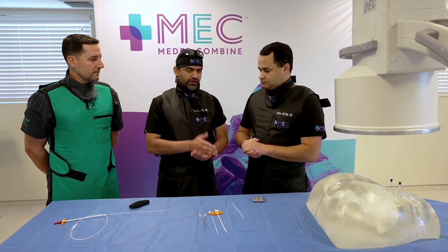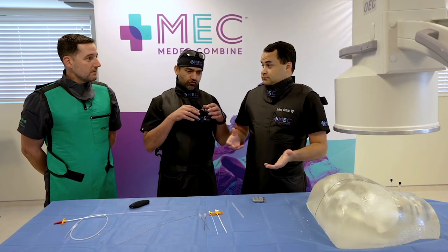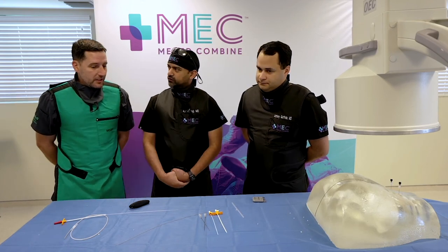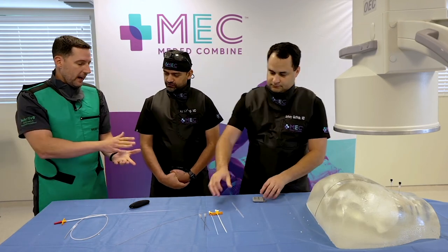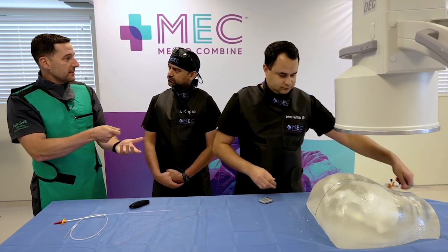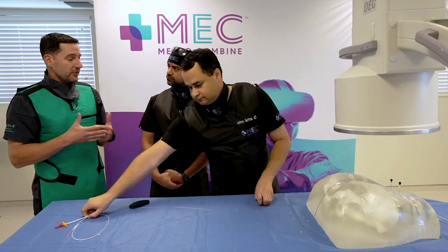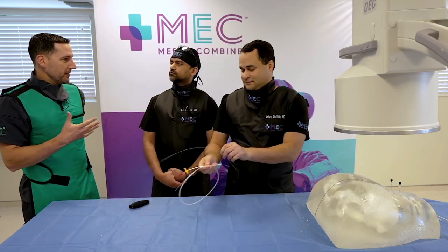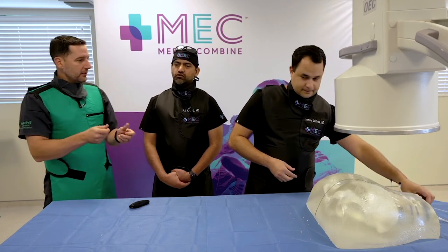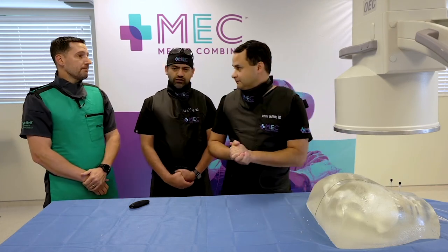Why wait two weeks? It's a combination: we're going to be contracting that muscle right underneath the incision, and that contraction is much stronger than what the multifidus normally sees just walking around day to day. We want to make sure everything settles in so there are no issues.